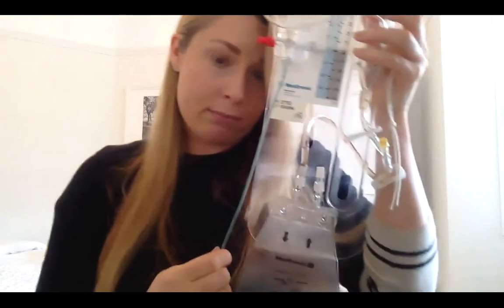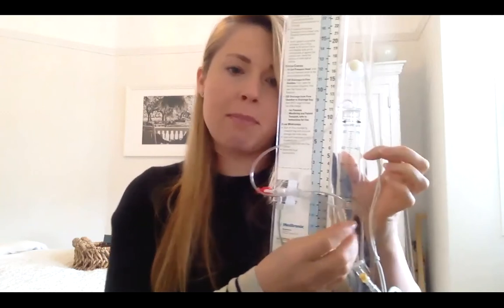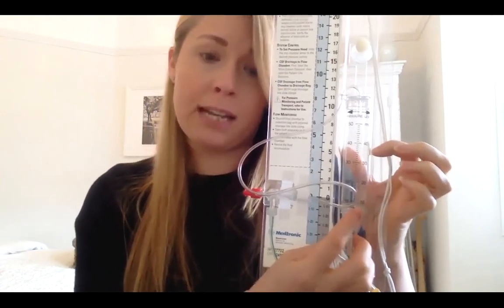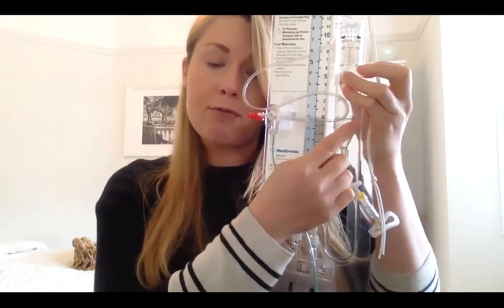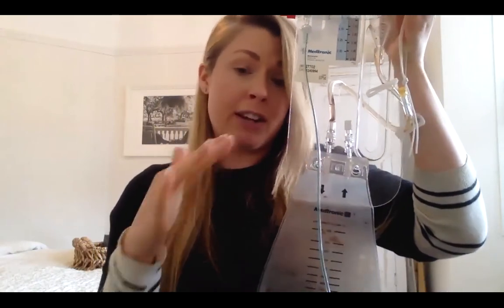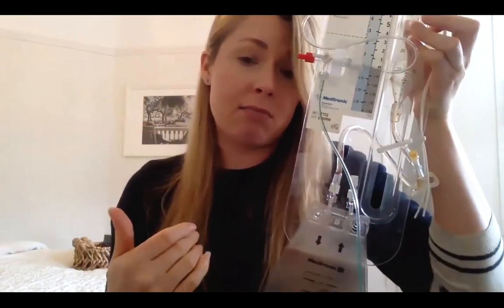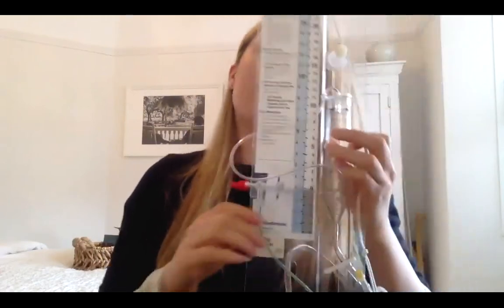This will then next flow into the CSF chamber. So from the patient, green, it will come up into the tap, flow through the chamber here and into the top of the chamber. It will drip down into the chamber where the nurses will document the volume that comes out each hour. And then once they've read that, so if it's 10 mils that hour, they will open the clamps and it will drain into the collection bag. And that collection bag will just fill up and it will only be emptied when it's full or if its integrity is lost. So you don't need to worry about that.